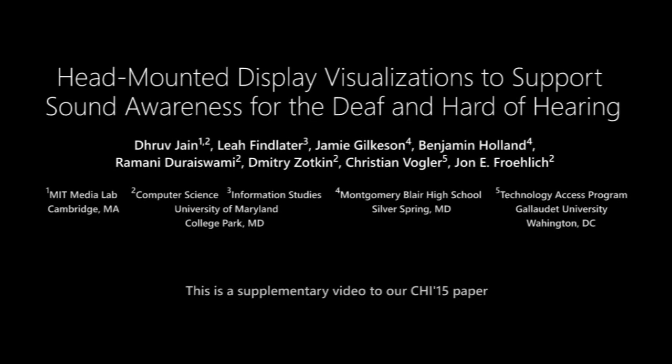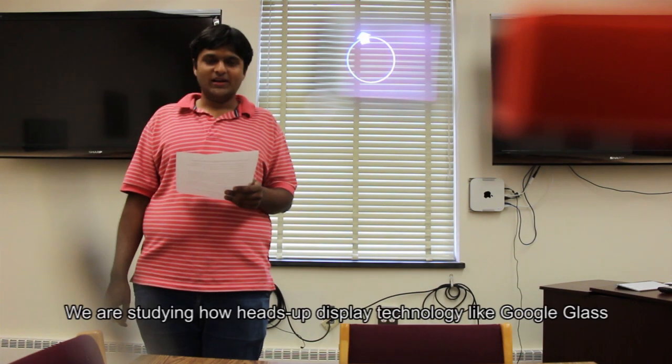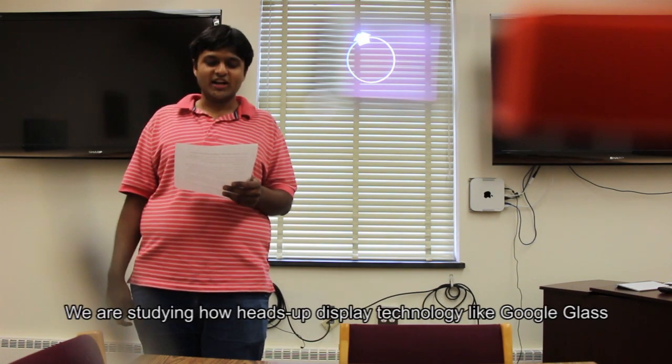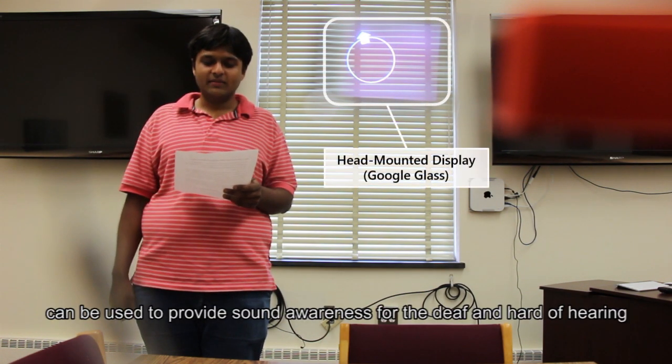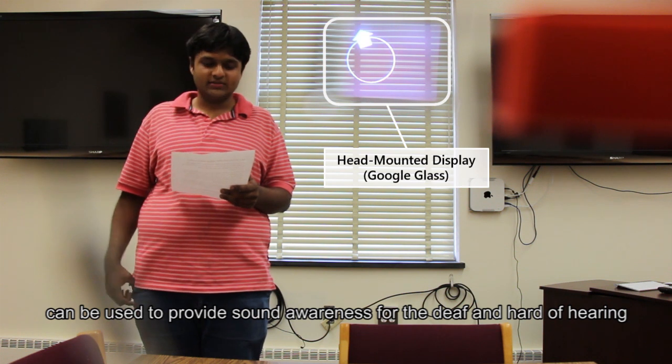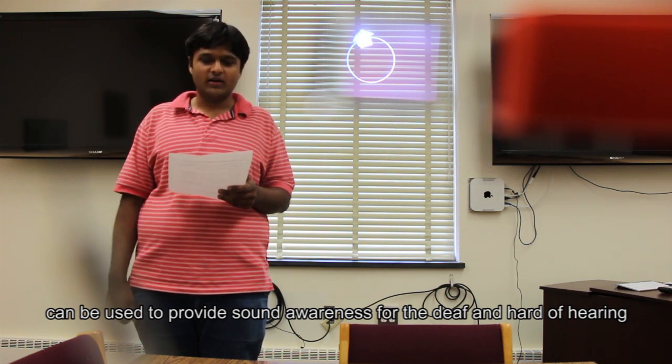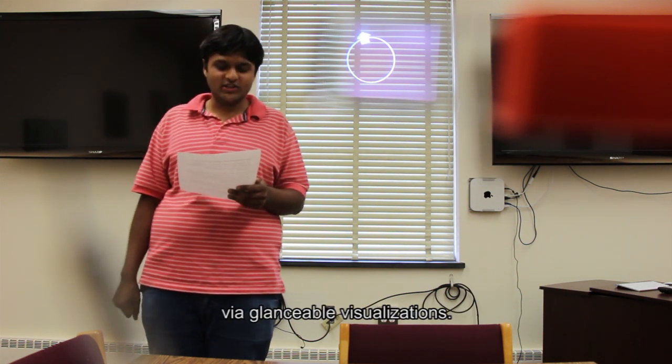Head-mounted display visualizations to support sound awareness for the deaf and hard of hearing. We are studying how head-up display technology like Google Glass can be used to provide sound awareness for the deaf and hard of hearing via glanceable visualizations.